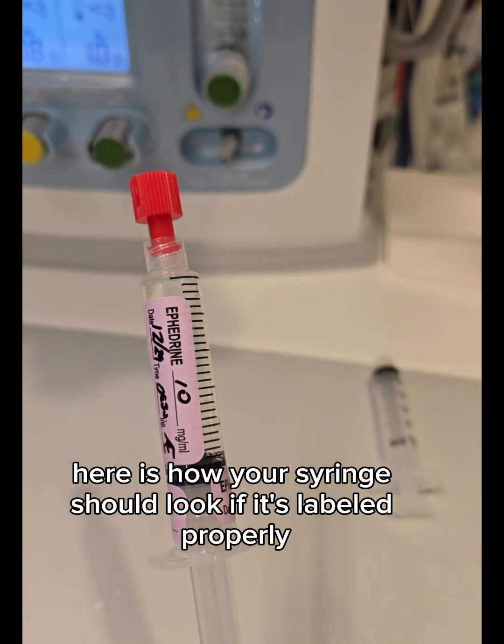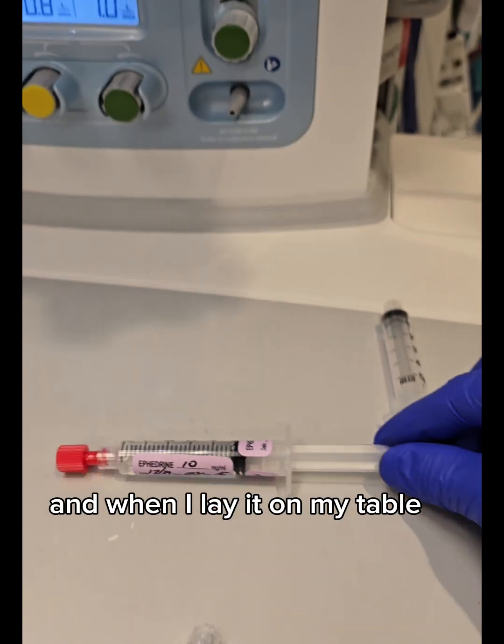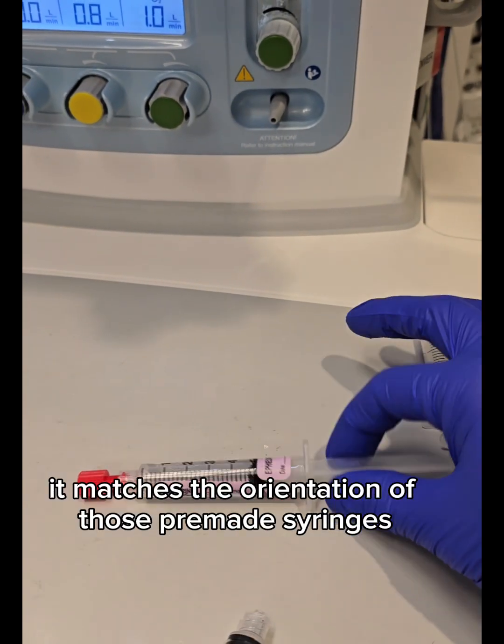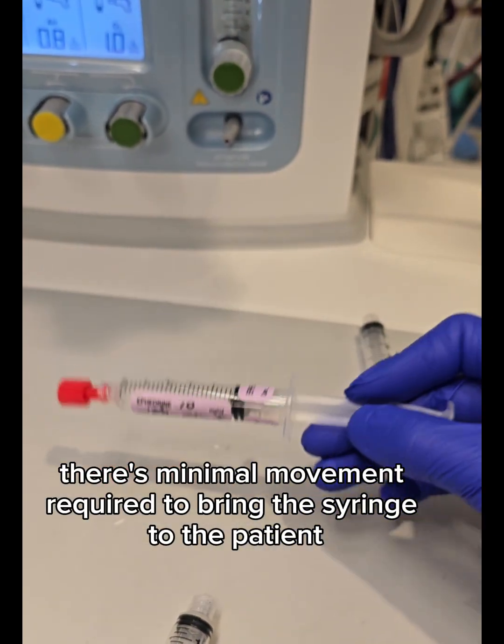Here is how your syringe should look if it's labeled properly. Notice the labels on the left side of the numbers, and when I lay it on my table, it matches the orientation of those pre-made syringes, and there's minimal movement required to bring the syringe to the patient.